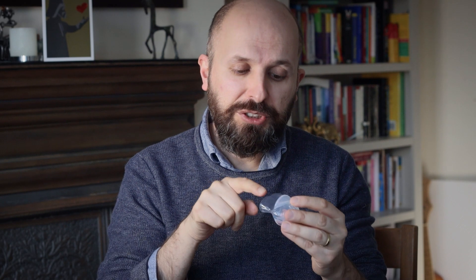The way it works is that you push your tongue into the little suction cap, and because air can't get round it, the tongue can't come back out again unless you really prise it out. If you look at the bottom, there's a little V there, and that's to go underneath your tongue. Some people have a tongue tie, and that prevents them from pulling out their tongue too far.